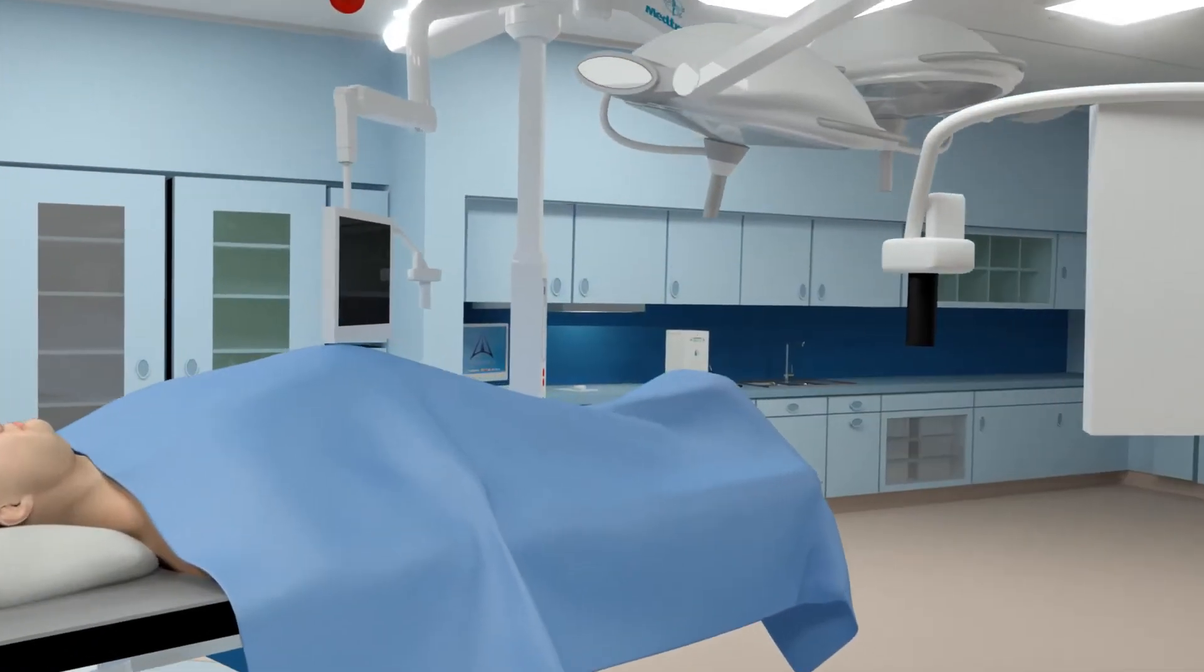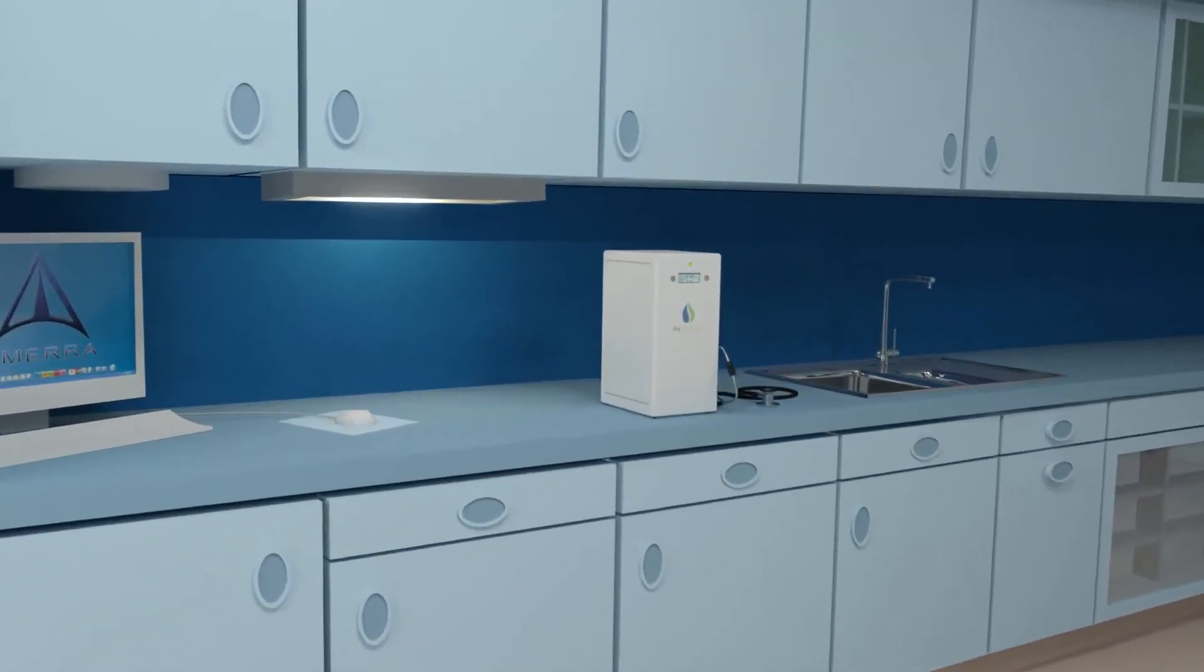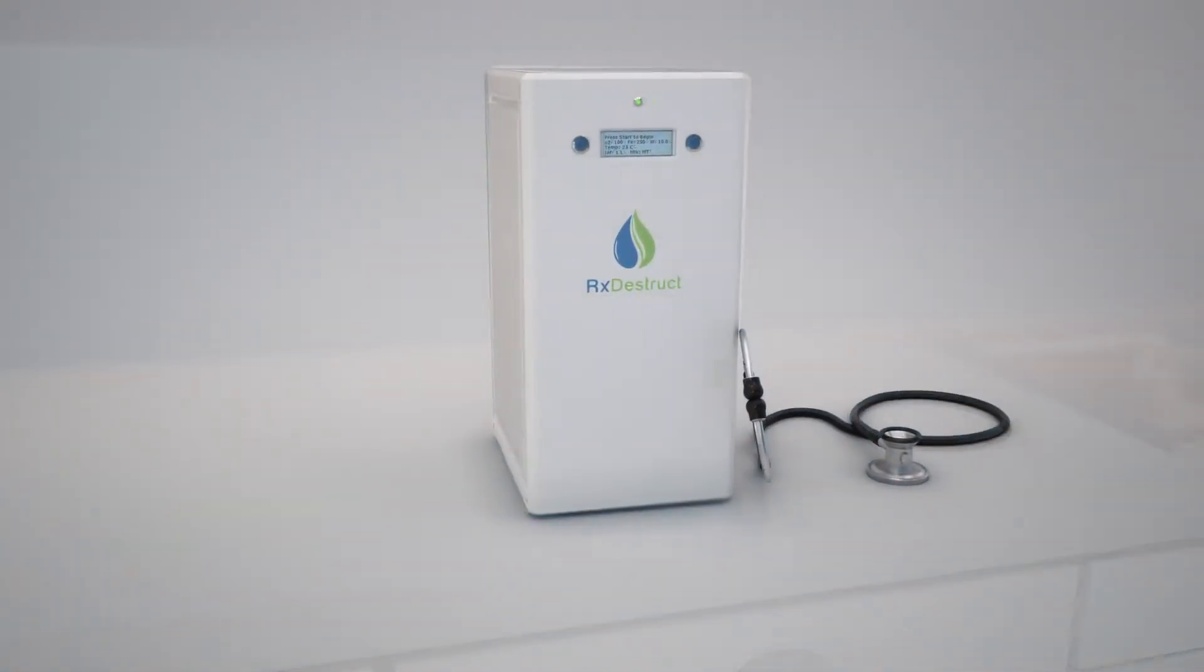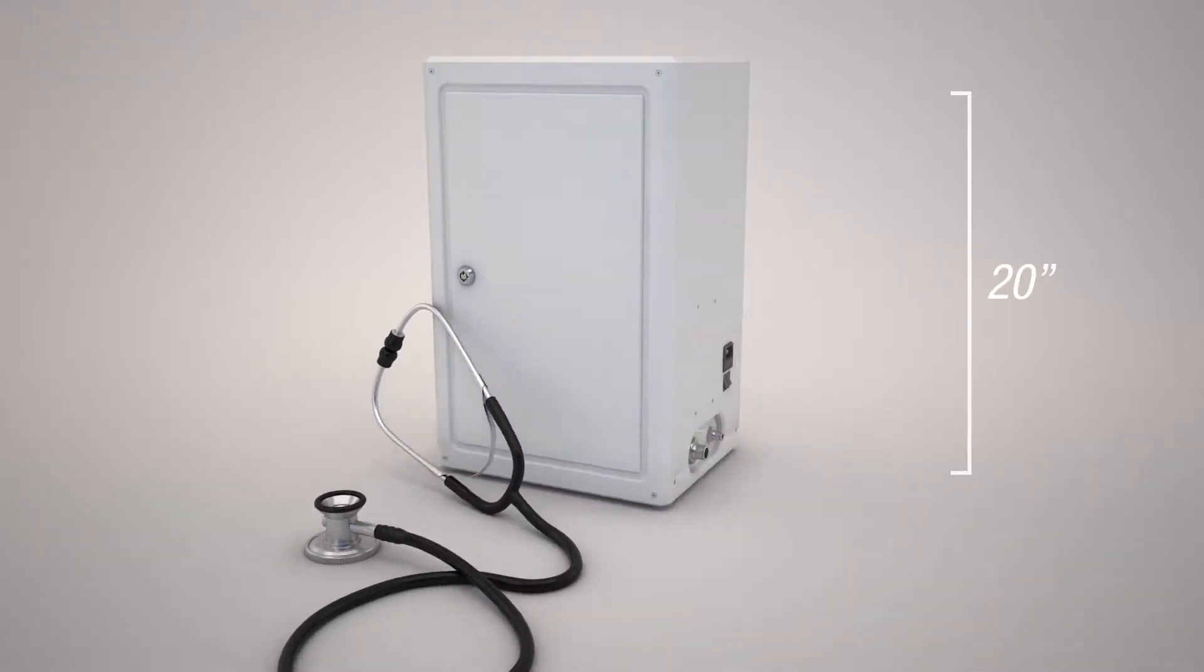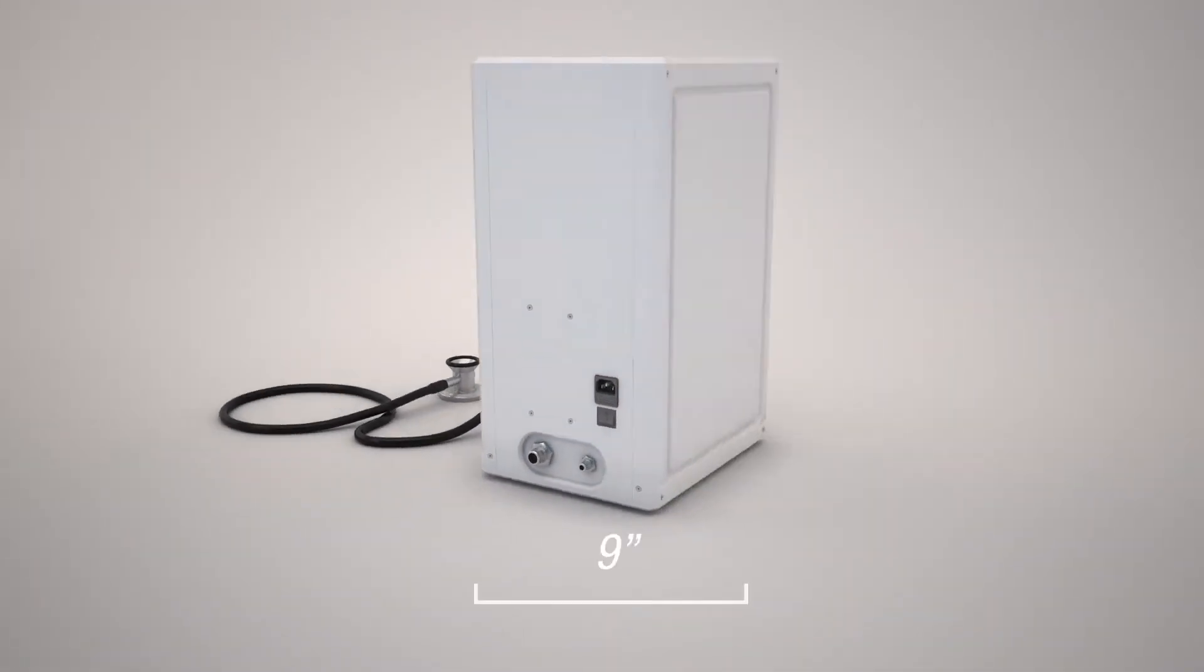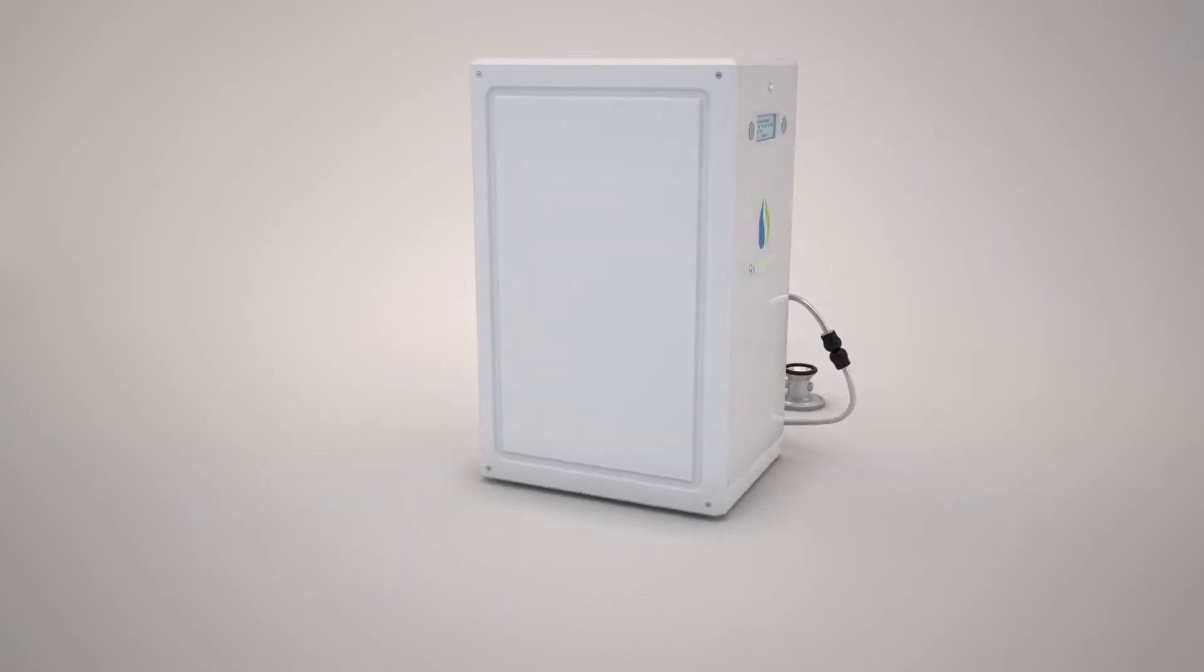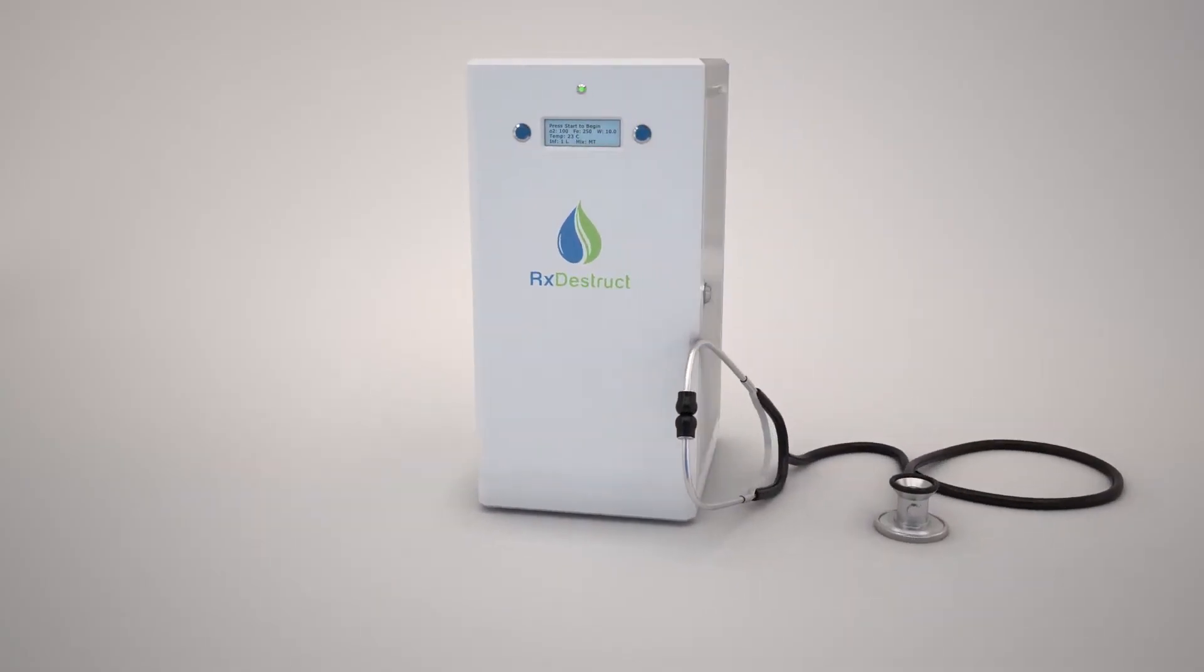RxDestruct is a patented DEA and EPA compliant solution for the destruction of controlled substances and other pharmaceutical waste at the point of generation. A desktop size unit can be permanently installed in a medication room or reside on a mobile cart for portability purposes.